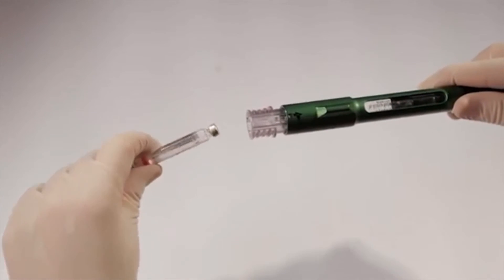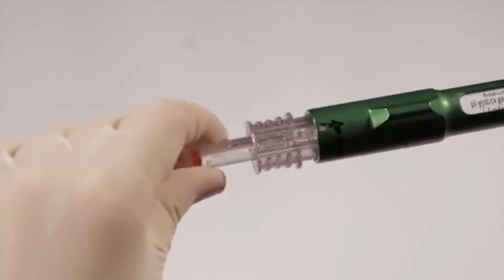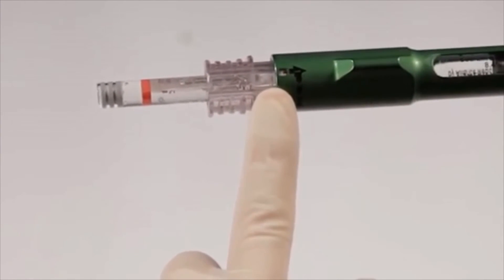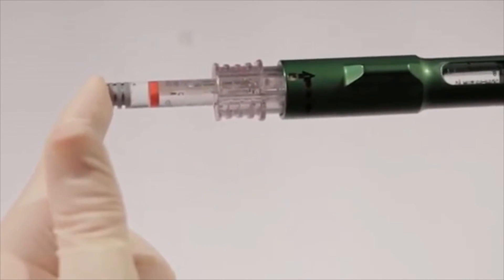Then reload the cartridge, making sure the connector is aligned with the pin in the number one position. Check to make sure the metal cap of the cartridge is hidden from view in the connector, which indicates that the 1.8-milliliter cartridge is fully seated.